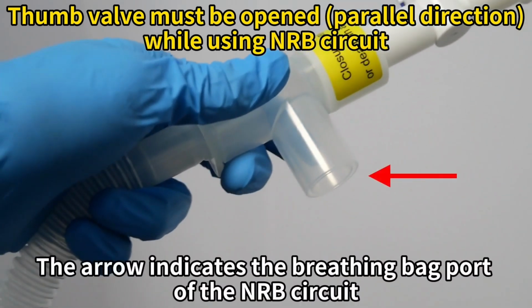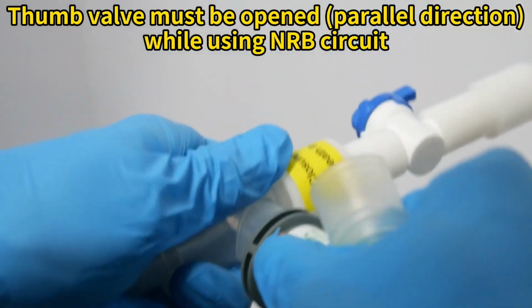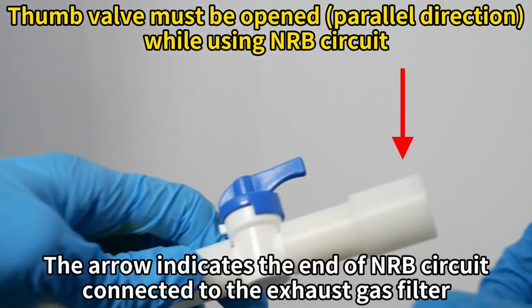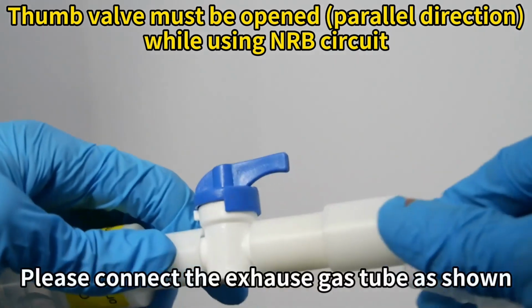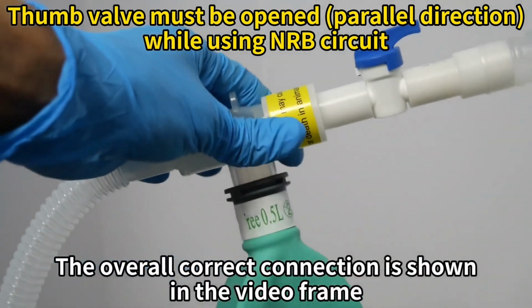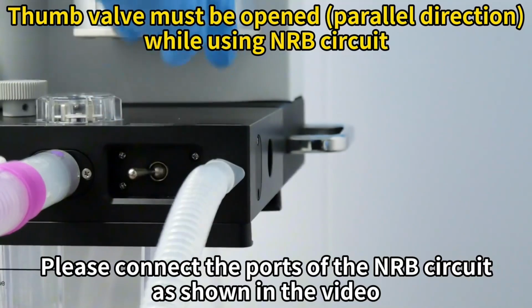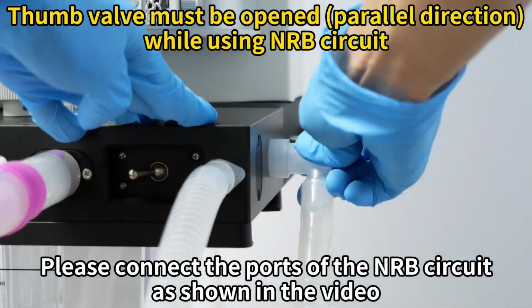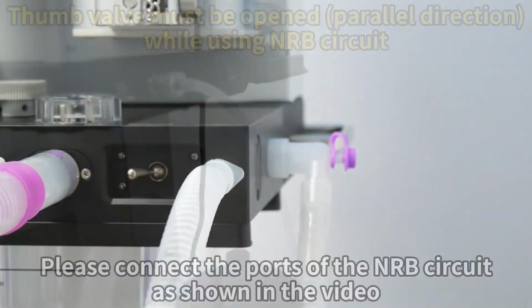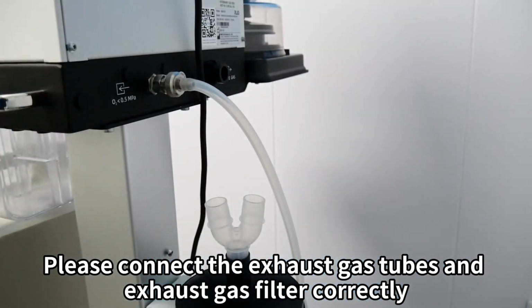The arrow indicates the breathing bag port of the NRB circuit. Please connect the breathing bag as shown. The arrow indicates the end of an RB circuit connected to the exhaust gas filter. Please connect the exhaust gas tube as shown. The overall correct connection is shown in the video frame. Please connect the ports of the NRB circuit as shown in the video. Please connect the exhaust gas tubes and exhaust gas filter correctly.